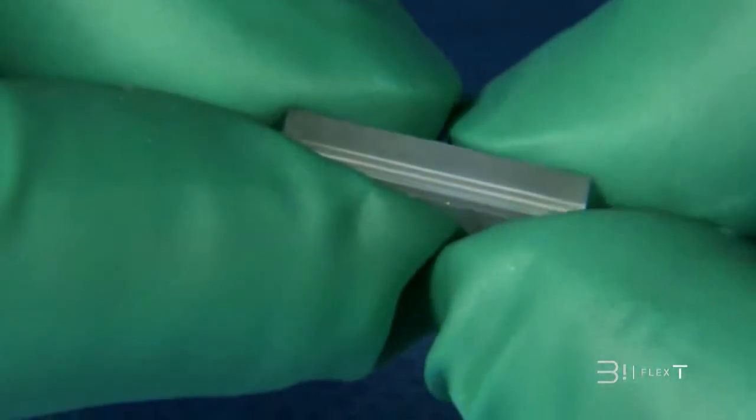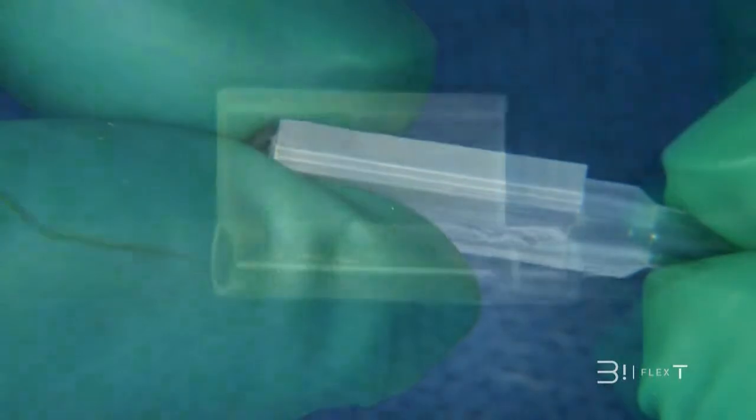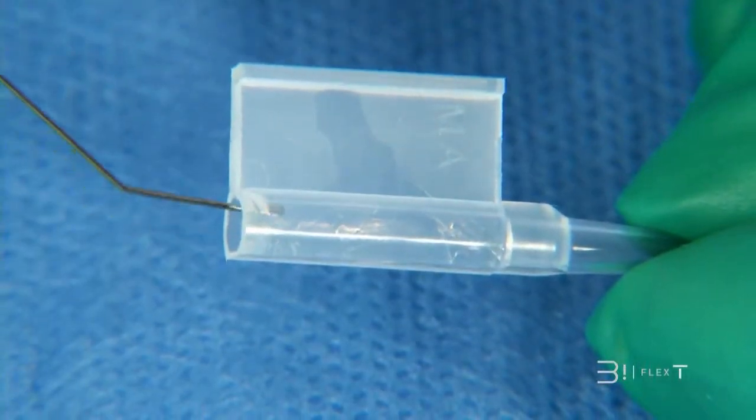Be sure the implant does not move and inject some visco gel into the cartridge on both sides.